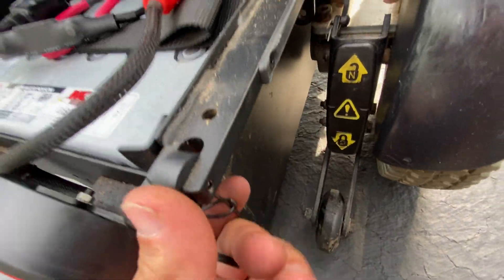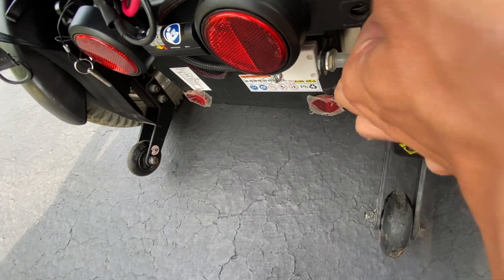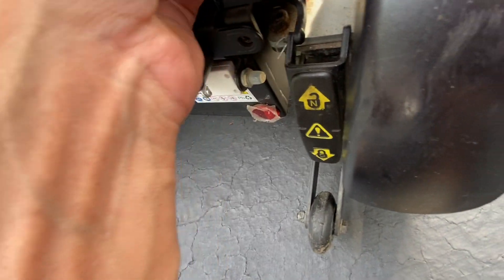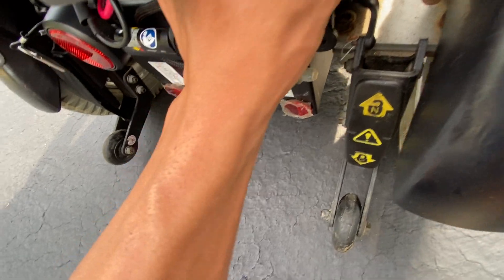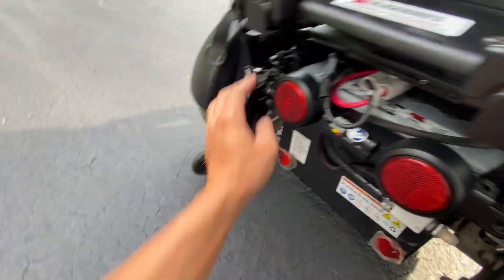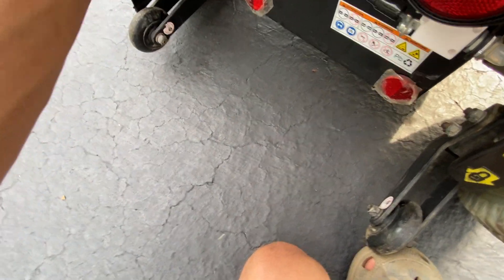The rolling tray has rollers and a support roller inside, making it very convenient to access the batteries. Servicing is so much easier — you don't have to tear anything off or take off body panels, just the one cover. The locking pins are important to keep in place, because without them the battery tray could slide out and you'd be dropping your $300 batteries, which would be a huge problem.